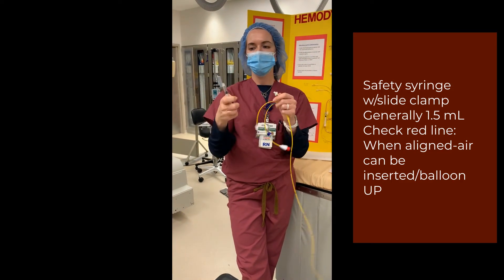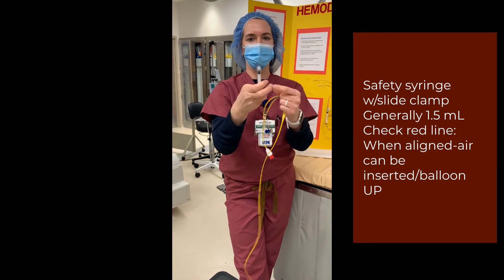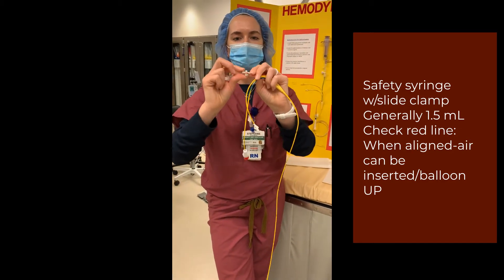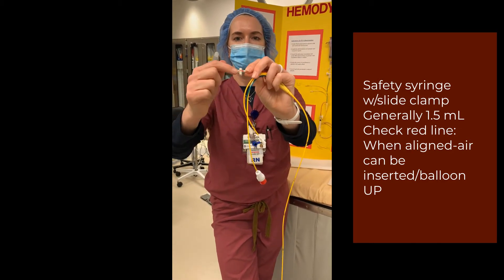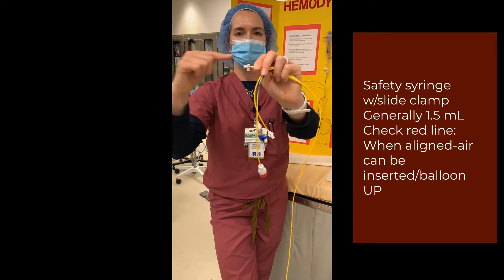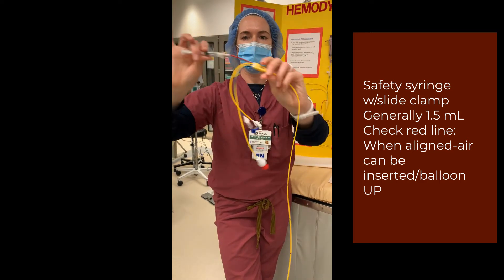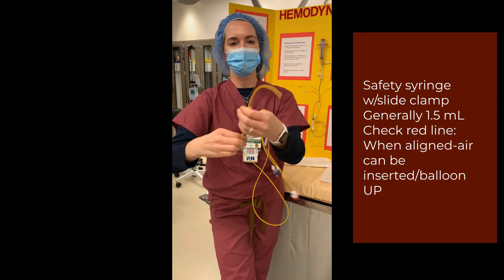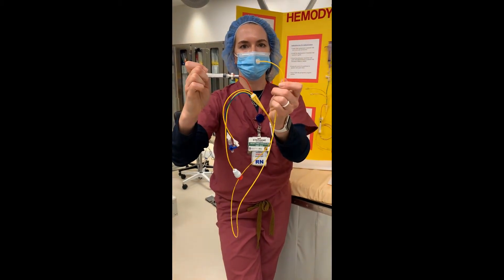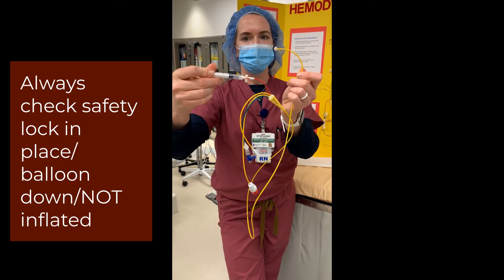You're also going to see a syringe with a little slide clamp. This is a 7 French Swan catheter; our syringe holds one and a half mLs of air — you cannot pull it back further than that. There's a connector with a red line: when the red line is aligned, that means you can inject air through it. I'll attach my syringe and inject air so you can see this balloon inflate at the distal tip.